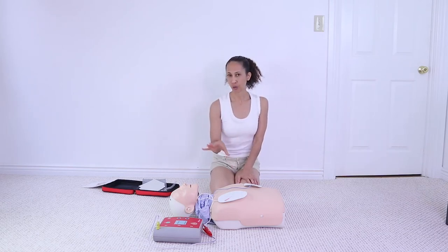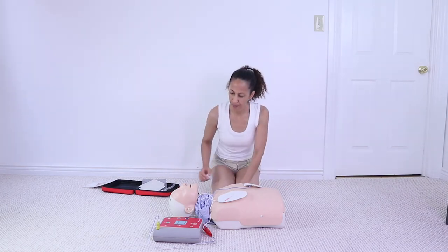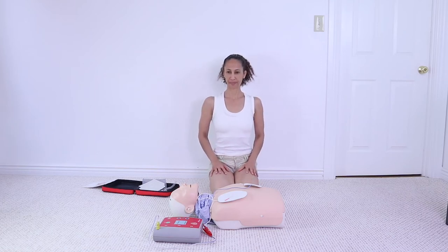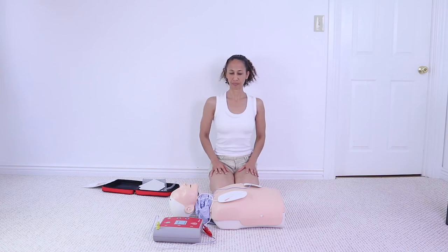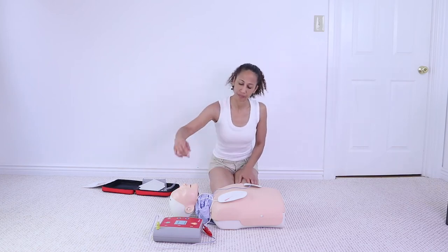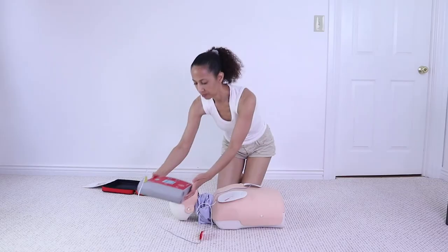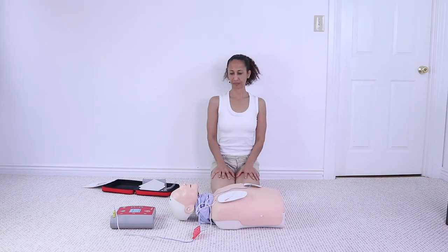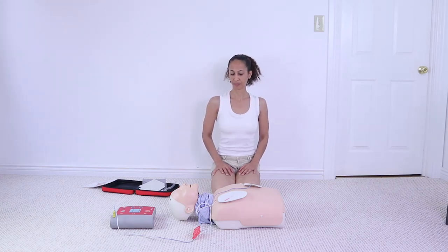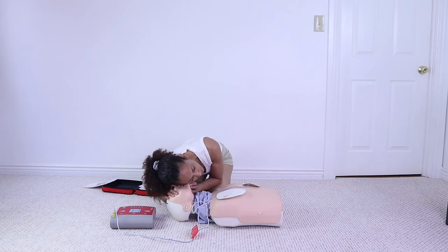All you need to do is listen to the prompts. If a shock has to be delivered, make sure everybody stands clear of the person. Locate the blinking button. Shock delivered. Analyzing heart rhythm — do not touch the patient. No shock advised. It is safe to touch the patient. Check airway, check breathing, check pulse. If needed, begin CPR.